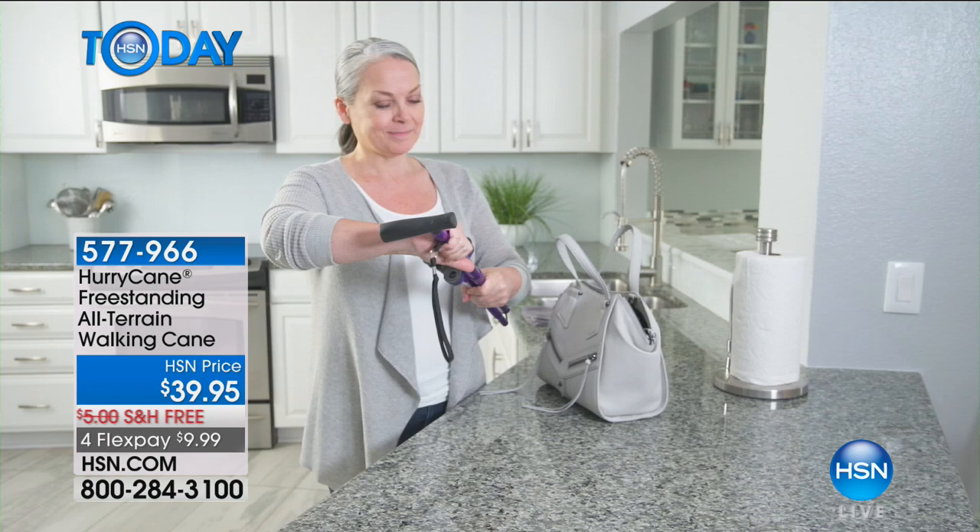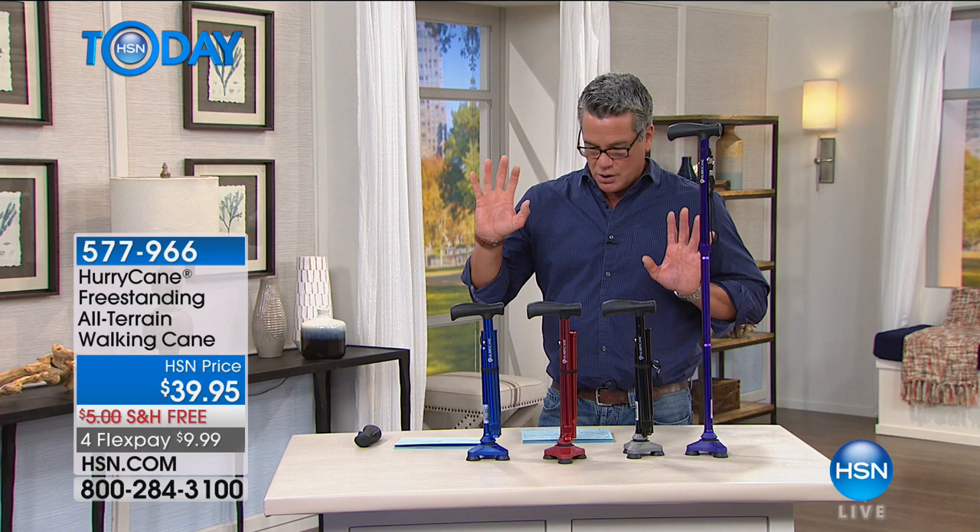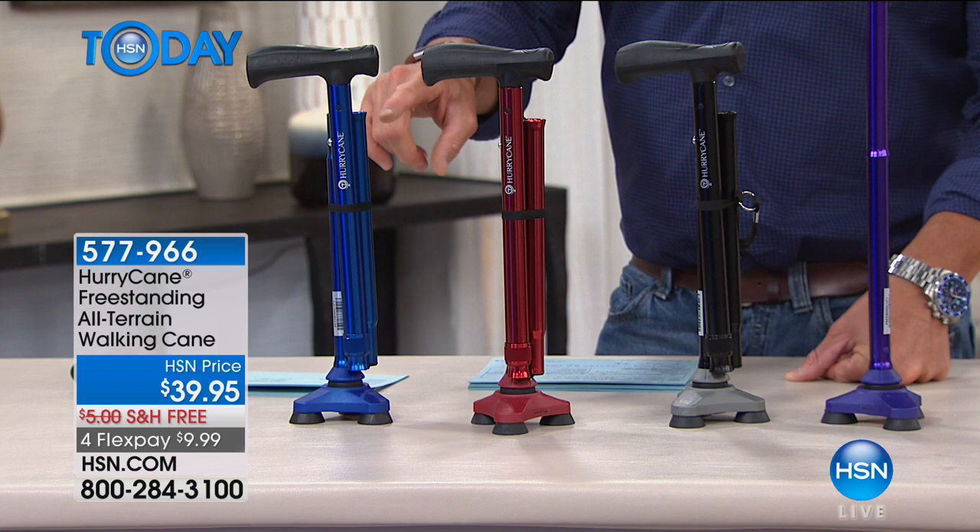With a little pull, it breaks down into thirds. And look — she's even carrying it in her handbag. So let me tell you what we have available right now. We still have four colors available: the beautiful blue, red, black, and purple.